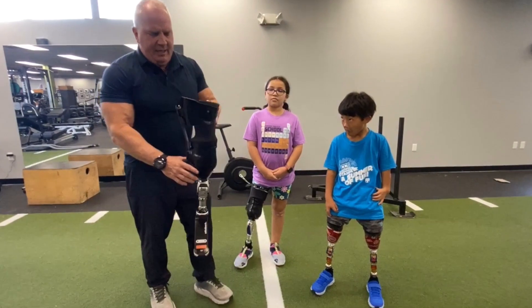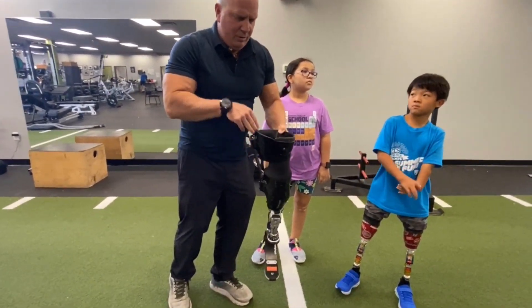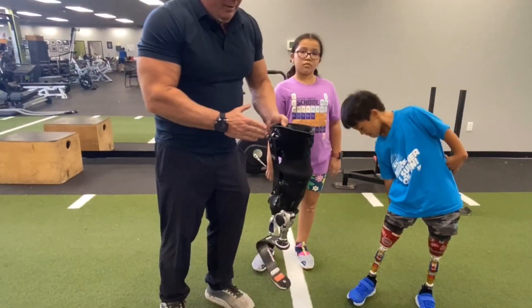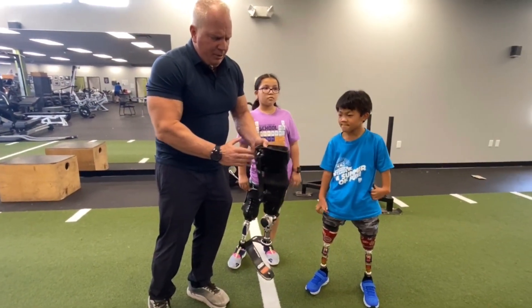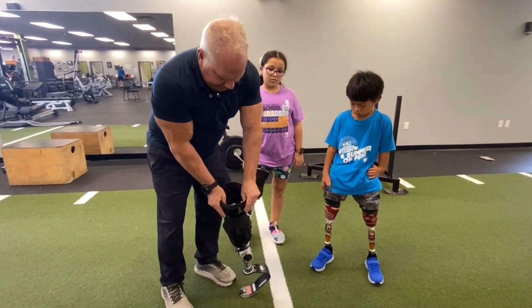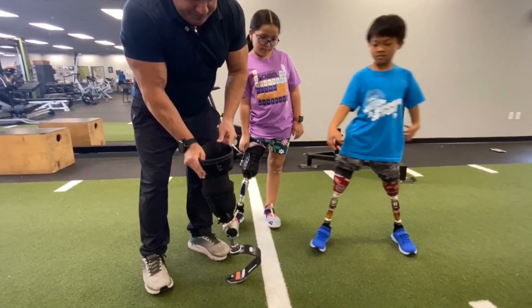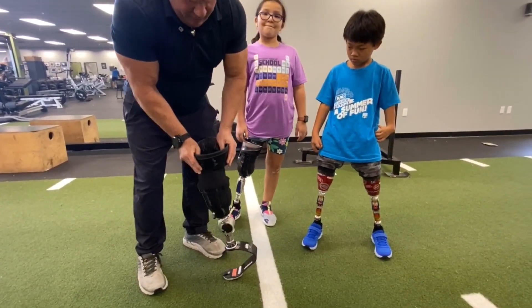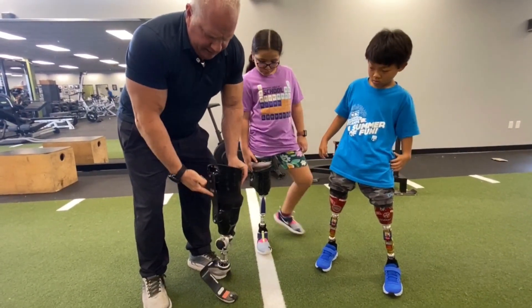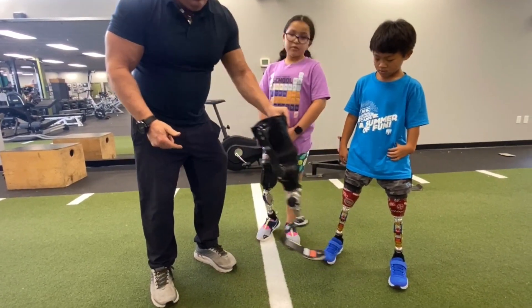What is designed here is we are putting the strut in more of the posterior lateral point. We need it right at the posterior lateral point to not only aid in the deflection — you can kind of see that when the person loads it up. Not only is the foot bending on the running leg, but also the strut is bending going forward and then helping release the energy.